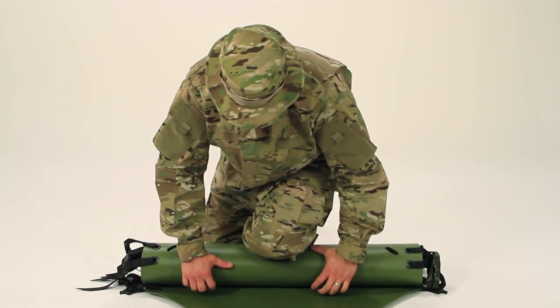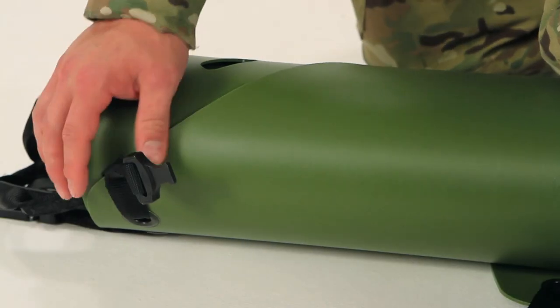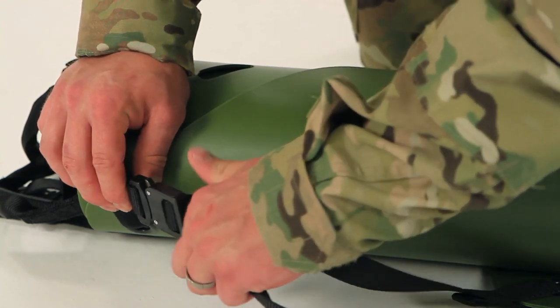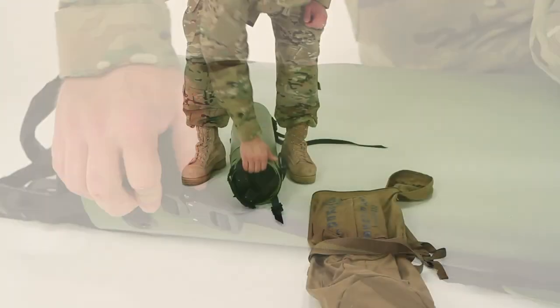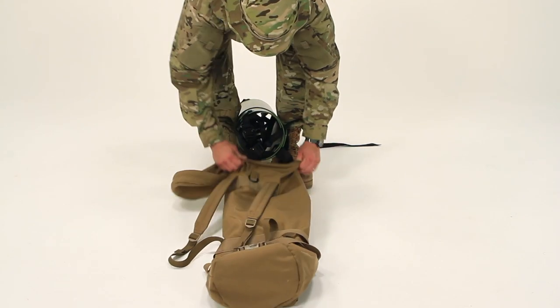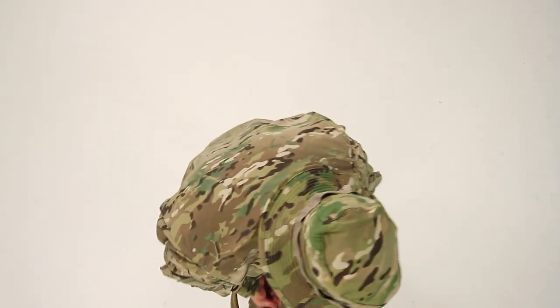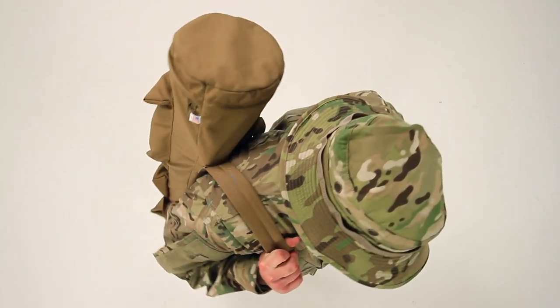Keeping your knee in a clamped position, secure the stretcher by buckling the two containment straps. Repackage the Sked by tucking one end into the pack, then pulling up the pack. Now your Sked is ready for deployment at a moment's notice.